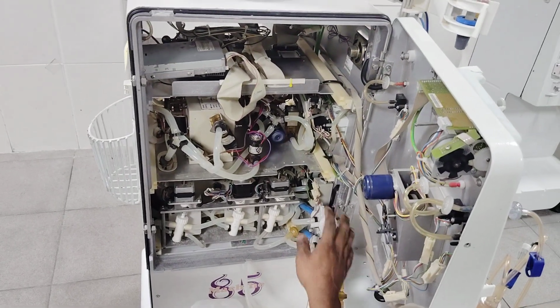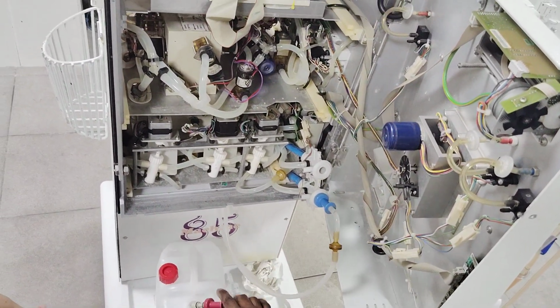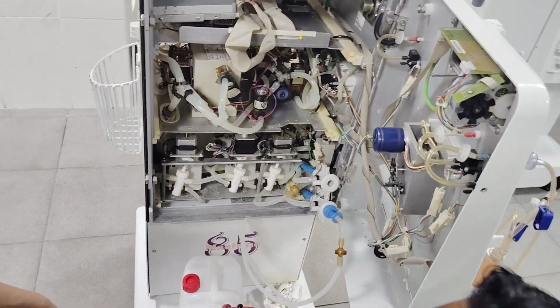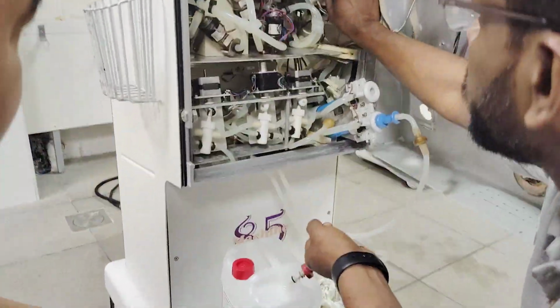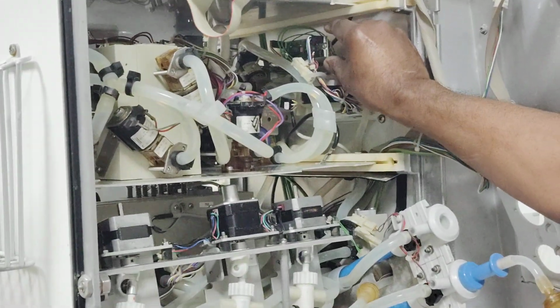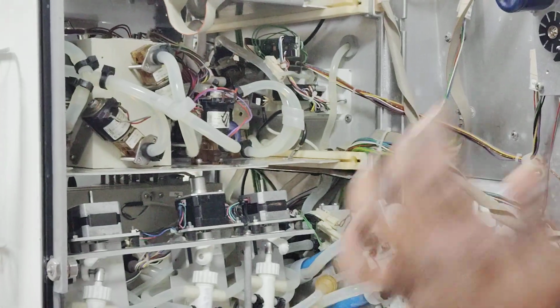This is called a suction rod. Both are called suction rods. This is a suction rod holder. And this is a citric motor valve, a small valve. So this is the circuit for that one. That circuit will be programmed for opening, closing, and all these things.